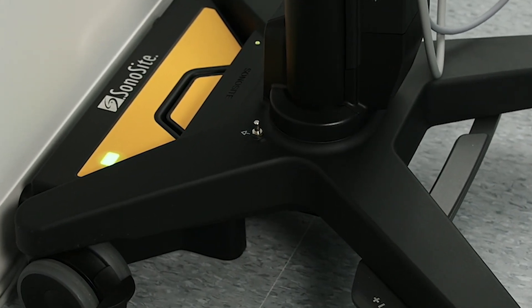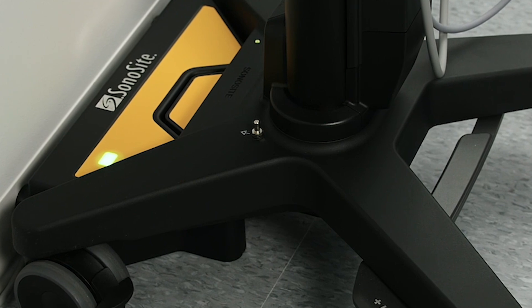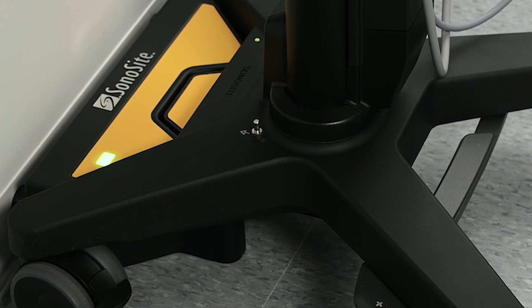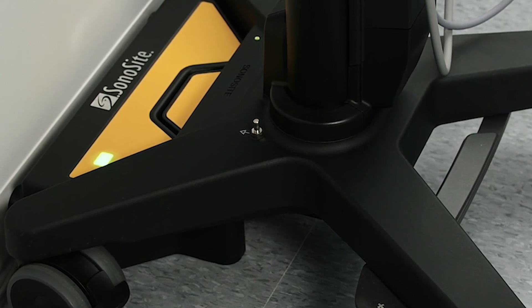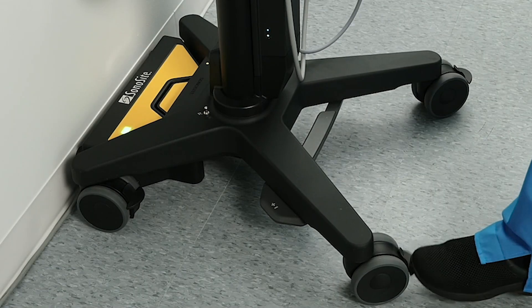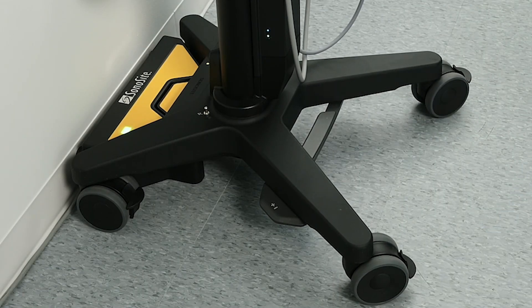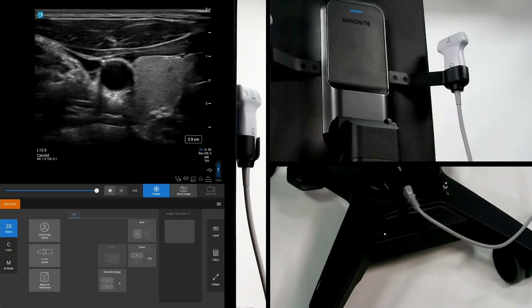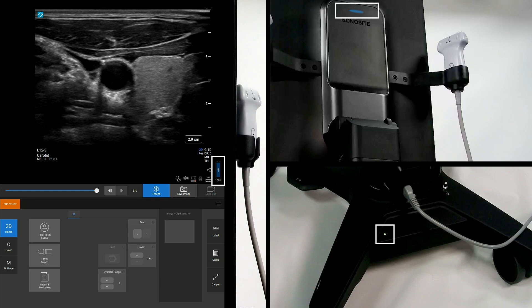The light on the Power Park module should turn on. To prevent the system from disengaging, lock one or more of the wheels. To make sure that your system is charging, check the light on the stand, the charging indicator on the touchscreen, or on the back of the clinical monitor.